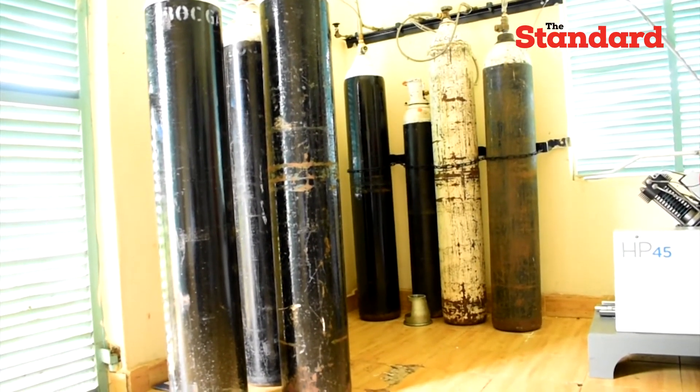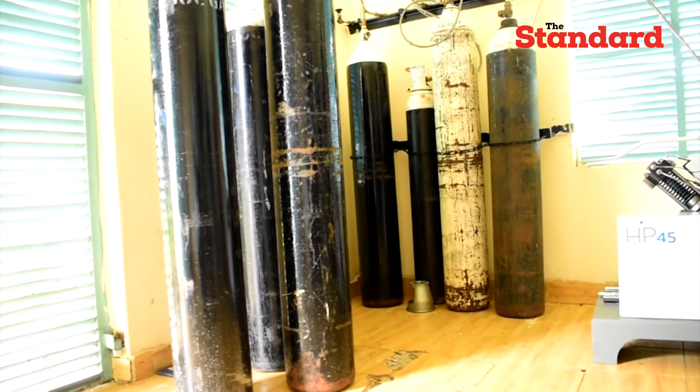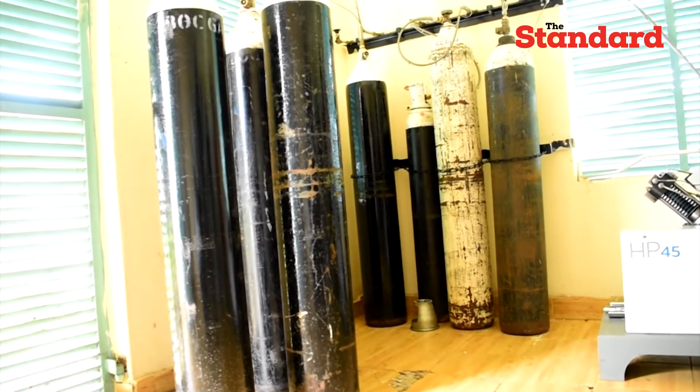We are also able to refill cylinders right here from our own plant. You can see the refilling unit here. We are able to refill about 4 cylinders of oxygen per every 6 hours, and these cylinders also support some facilities within the county, majorly the isolation centers that withdraw oxygen from this point.